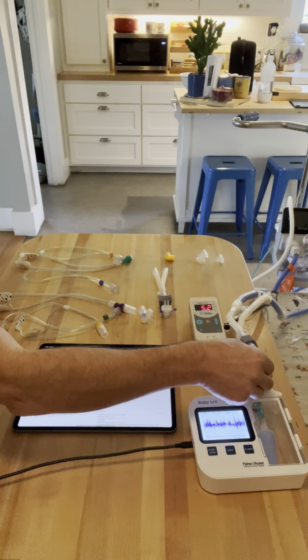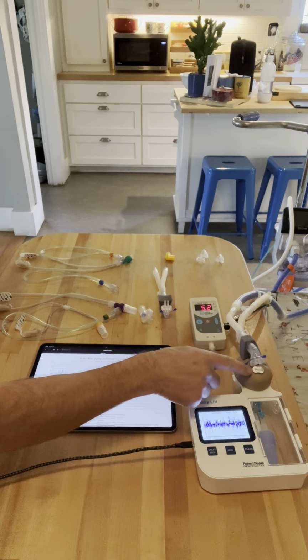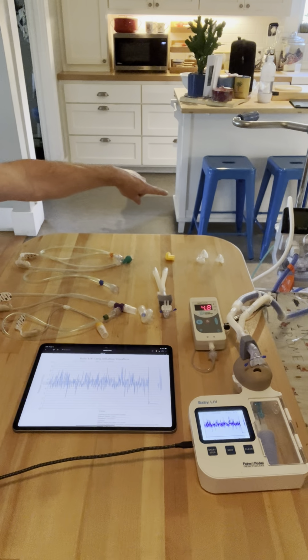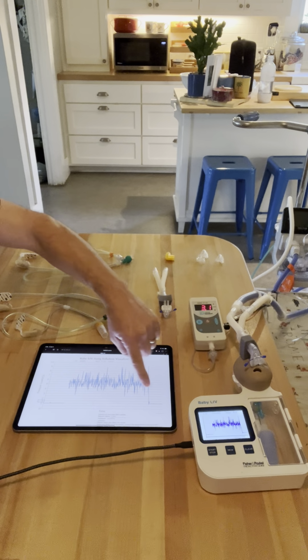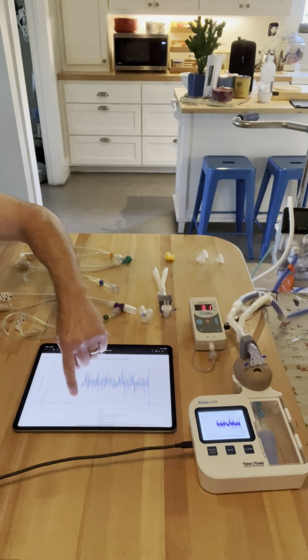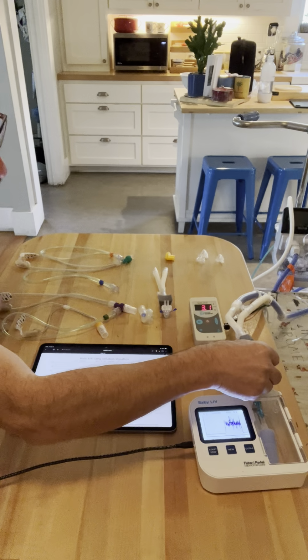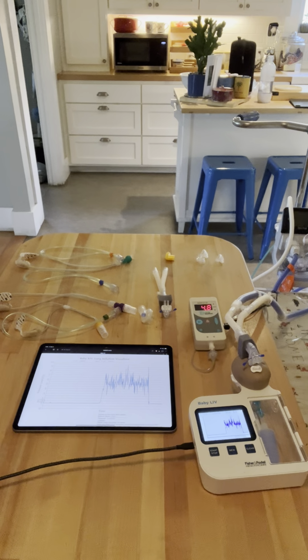Okay. I use a pacifier here to close out the mouth leak. When we take that out, my bubbles have stopped. My manometer is going down, telling me I have a leak, and the CPAP on my baby lung is actually running low. Eventually this will alarm, but I'm going to close off that alarm by plugging the pacifier back in, and now we've established a nice CPAP again, and everything is going great.